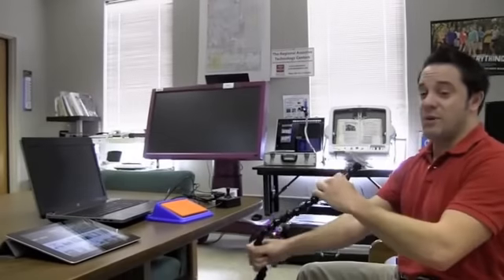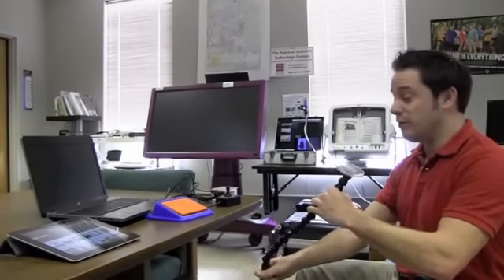That way the person can just roll up and view their iPad. They don't have to have it resting on this table, which may be difficult for them. If they can't hunch forward or look down to see it, it can be right where it needs to be in their field of vision.